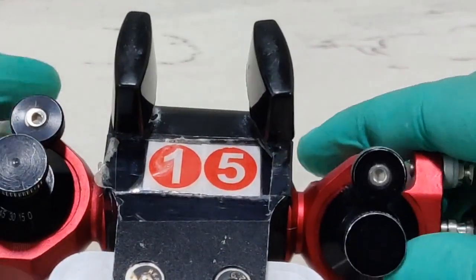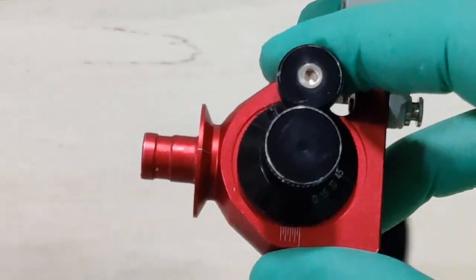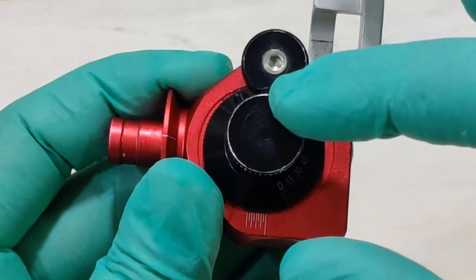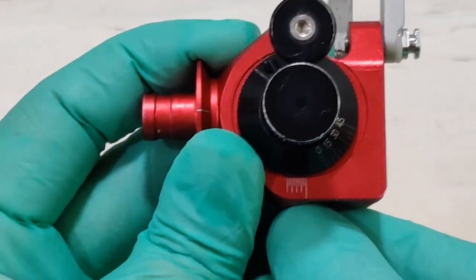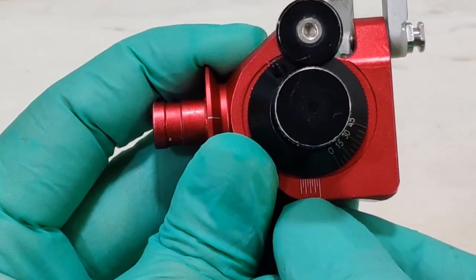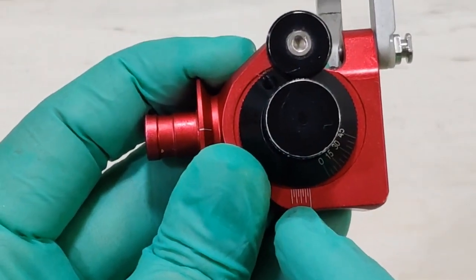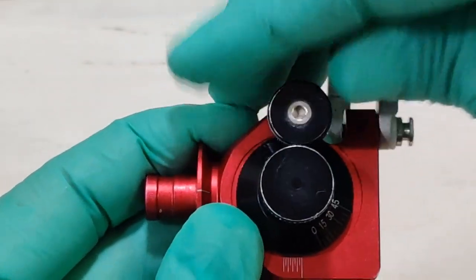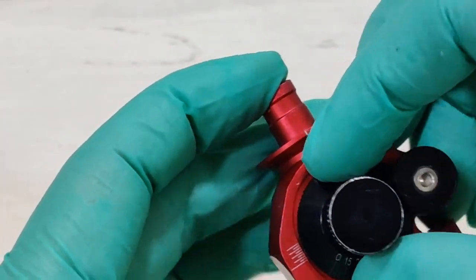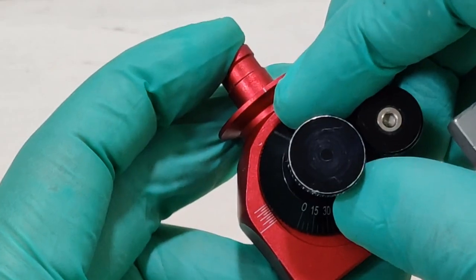However, if I were to open up this portion of the articulator and show you, you will be able to recognize that there are knobs present on the top here. Now what do these knobs do? Okay, let's look at the markings at the front here. Now these markings go from 0, 1, 2, 3 and 4 millimeters. These markings depict the immediate side shift of the mandible. If I open this particular knob here, I am able to move the entire component side to side. As I move the component side to side, this is your immediate side shift being incorporated.